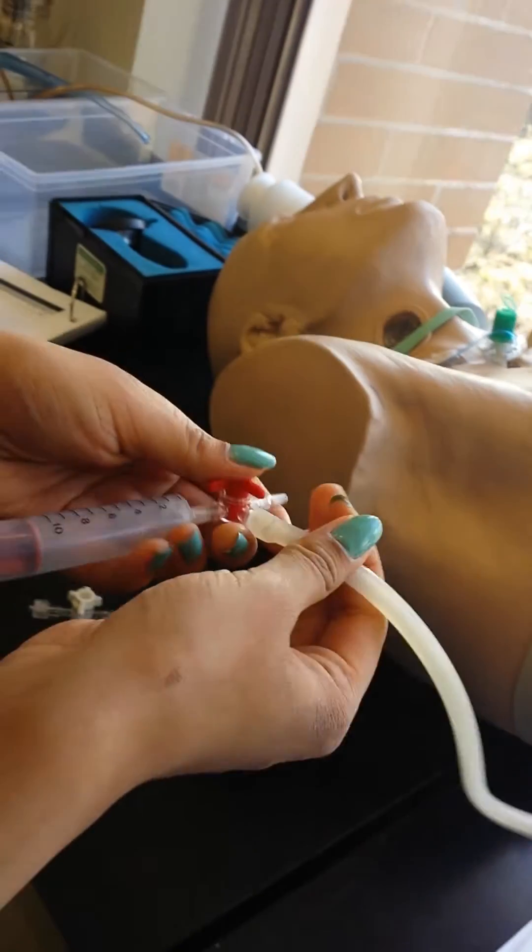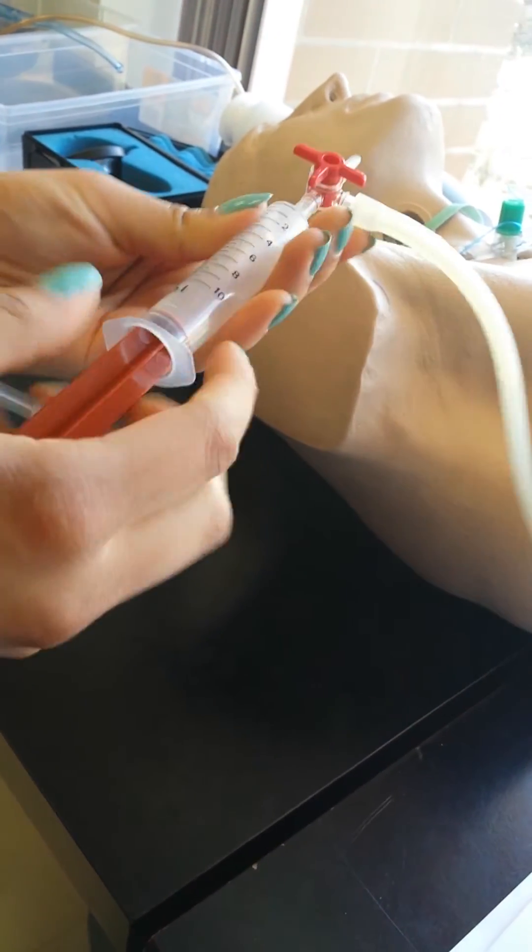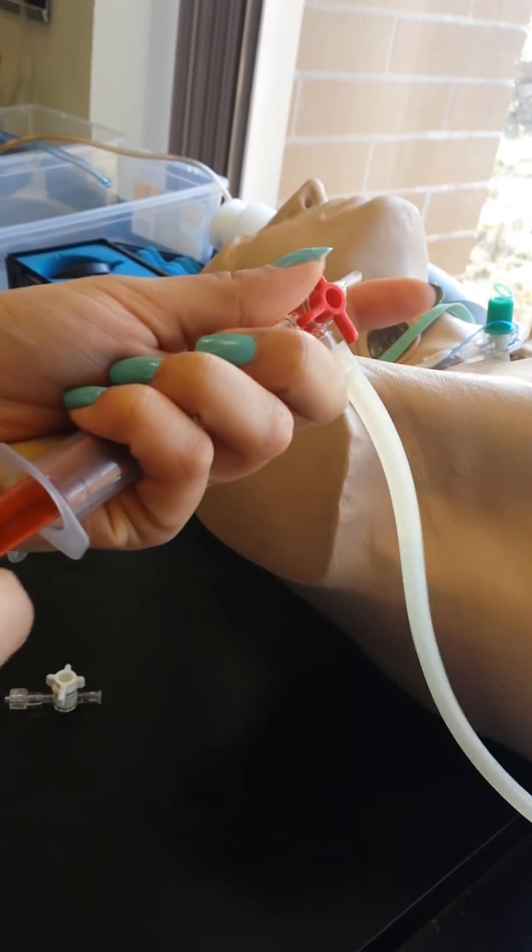Look at what your stopcock is pointing at. So your stopcock has to be set like this. It's being weird right now. You have to set your stopcock like that because you want it to go from here.